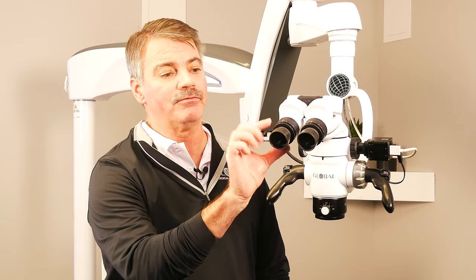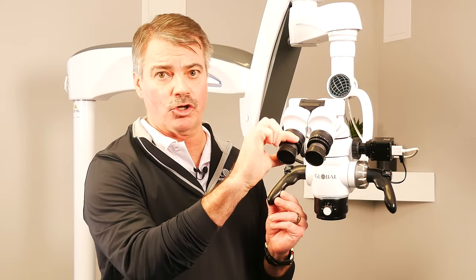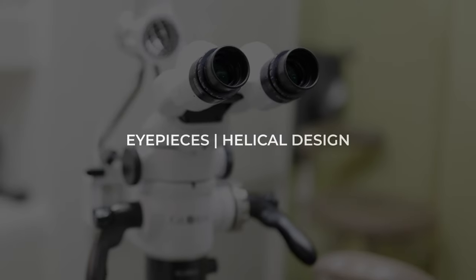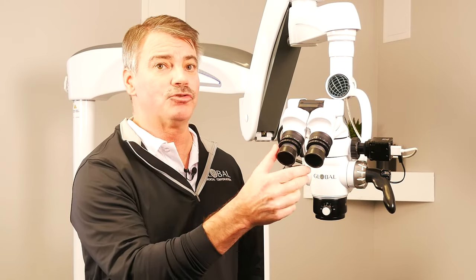Another important aspect of the binoculars is the eyepieces themselves with the diopter settings. This allows you to fine-tune the optics of the microscope to the particular user's vision. If a user happens to know their diopter settings for their prescription, they can dial those into the microscope and off they go. The eyepiece also uses a helical design which allows the operator to fine-tune the focus of the light hitting their eye to the sweet spot, ensuring a clear and vibrant image.